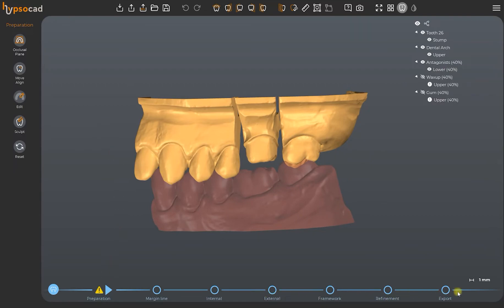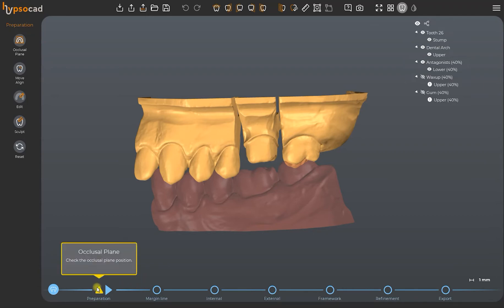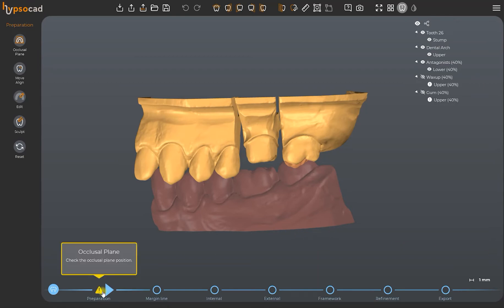At the bottom we see the step bar which will guide us through each phase of the process to achieve a correct creation of the prosthesis. Any possible warning or alert relative to the construction process will be highlighted interactively. By hovering on the alert you will see the description of the kind of error to be amended or any suggestion on any parts you should revise.